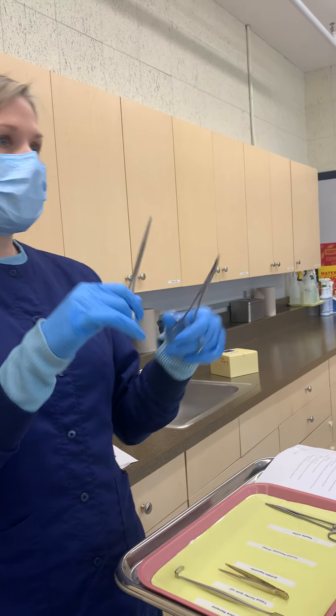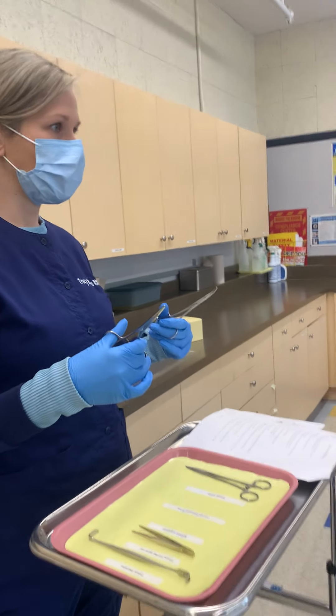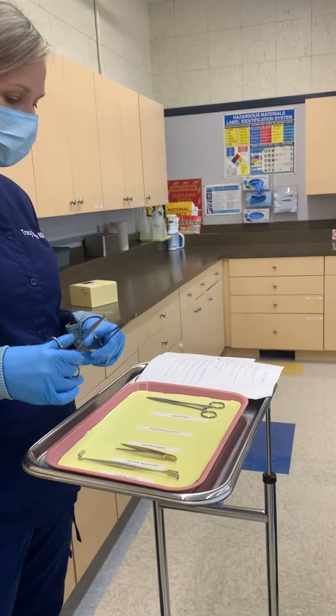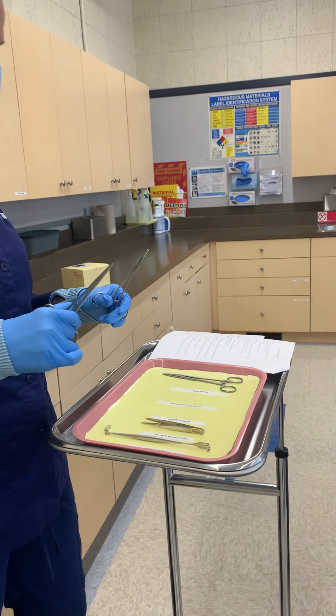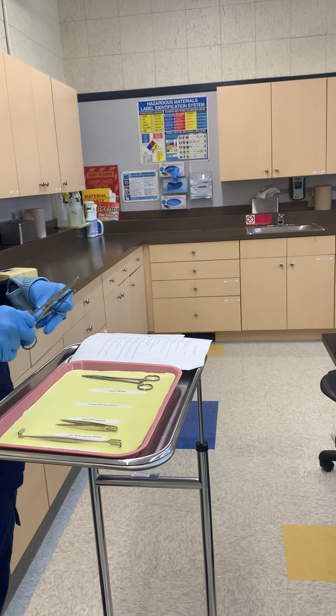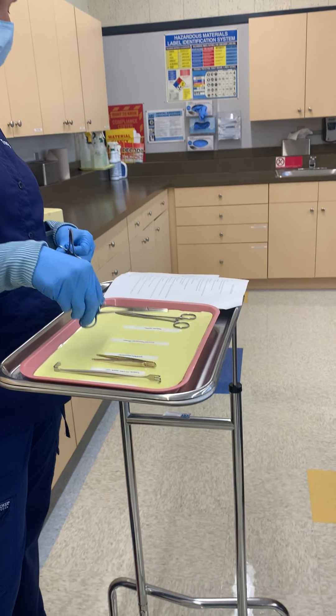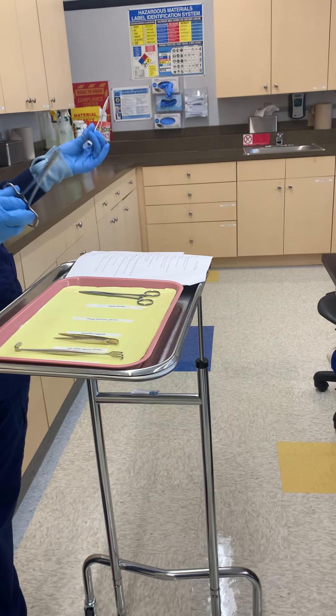This will be operator preference. The curved hemostat is sometimes known as a snap.